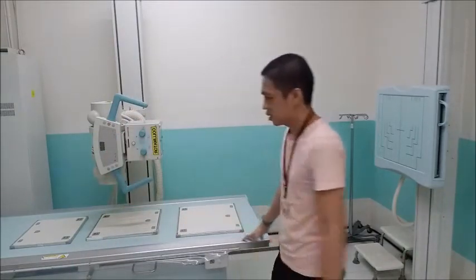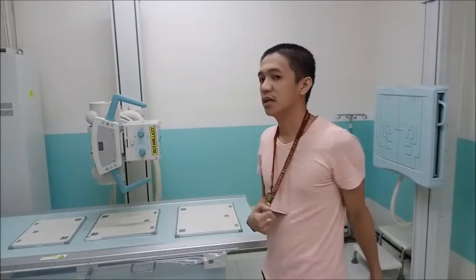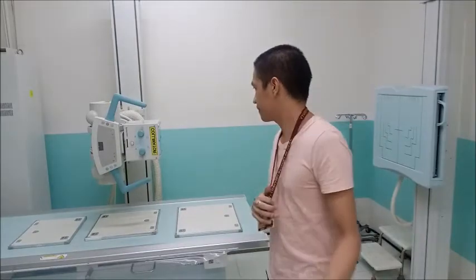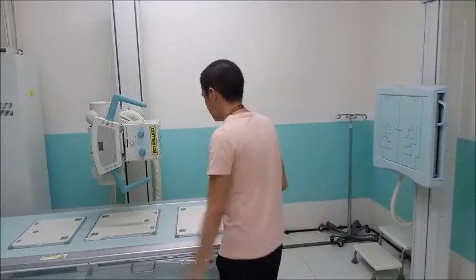Okay? So, in general radiography, if ever a patient is referred to your department and you are tasked with the exam, the first video will be for the most common examination, which is chest PA. So let's say a patient is referred to your department, and the examination is related to the chest, a general examination of the chest for physical exam. Then, this will be the basic setup. Of course, again, you have the tube and then of course you have the room.